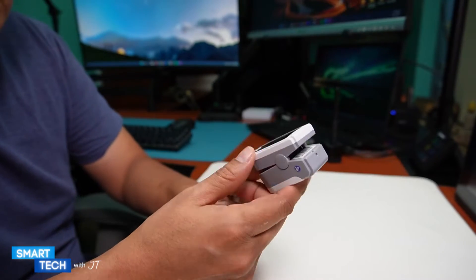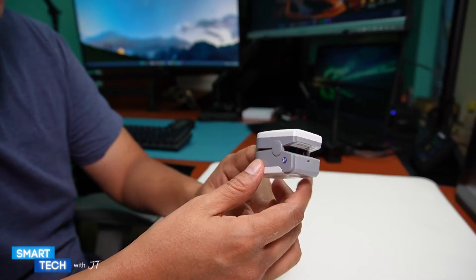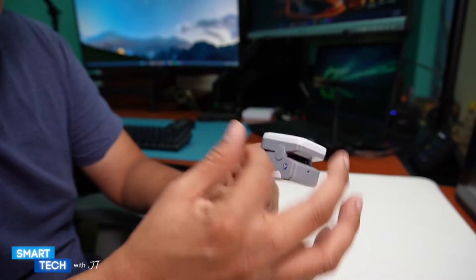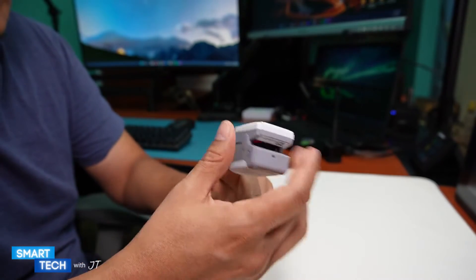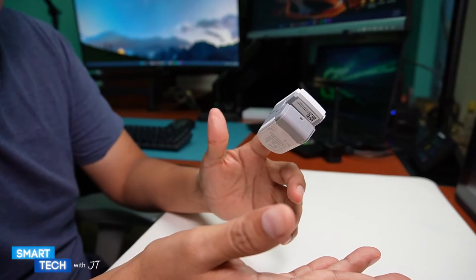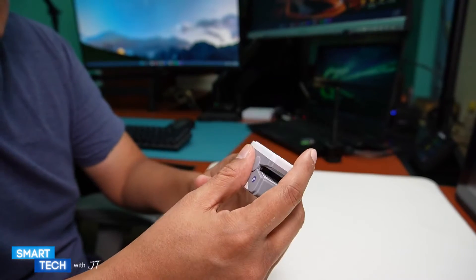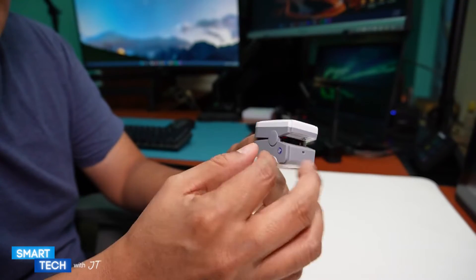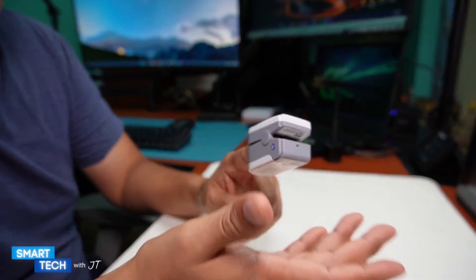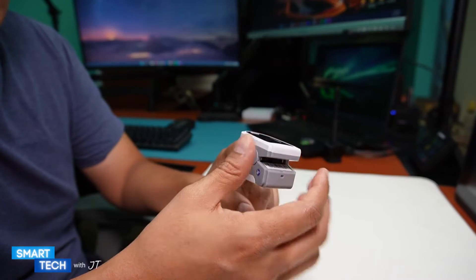The reason I upgraded to the other one was that with this one you're going to need to put some type of tape or gauze on your finger, because when you're sleeping at night you tend to move and it might fall off. Overall it has done a fantastic job — I usually put a light gauze on it and 99% of the time my finger won't come out.